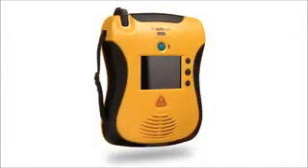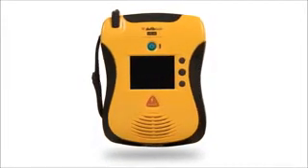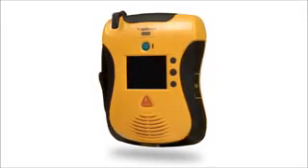You can see it for yourself over the next few minutes as I take you on a guided tour of the View, an exciting new breakthrough in life-saving technology. Why is the View such a revolutionary breakthrough in AED technology? Think of it this way. Using a conventional AED is like listening to a football game on the radio. Using the View is like watching the game on TV in high definition, full living color. The difference in clarity and usability is dramatic.